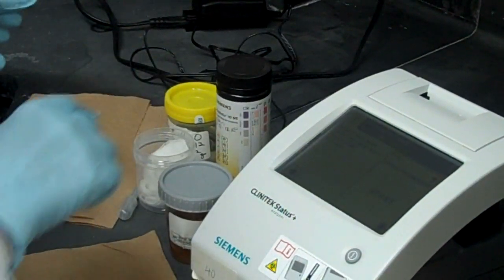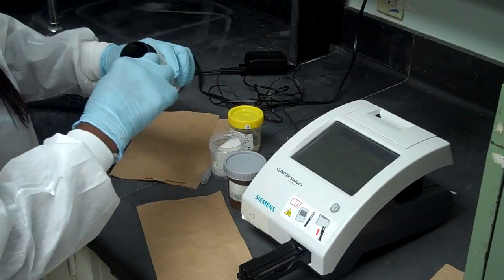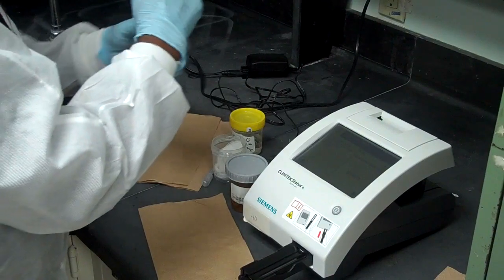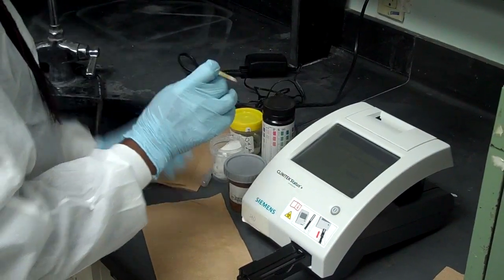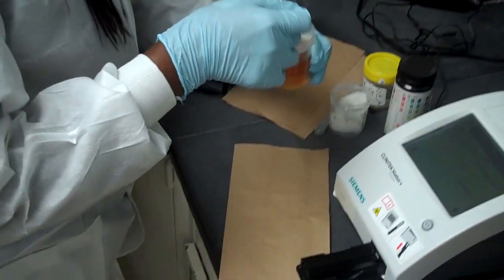Now we're ready to start the test. Take out a multistick. You dip it in the urine completely wetting all the pads.